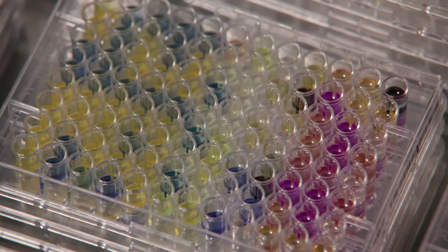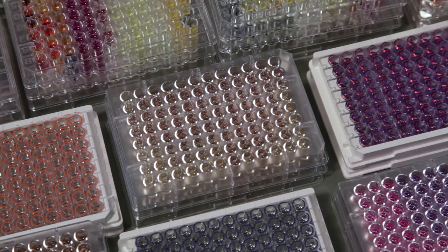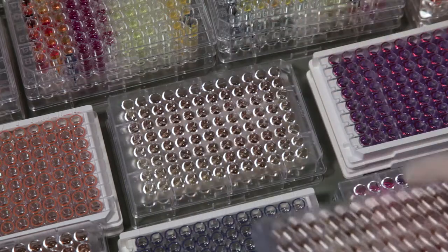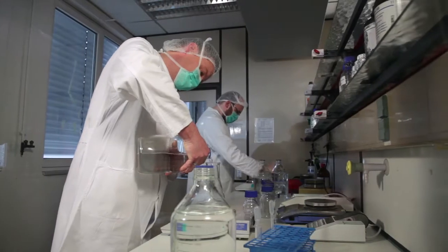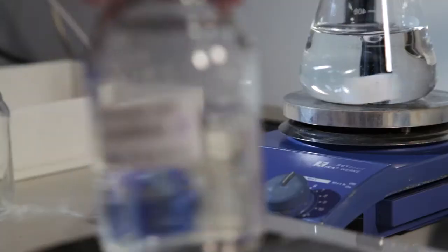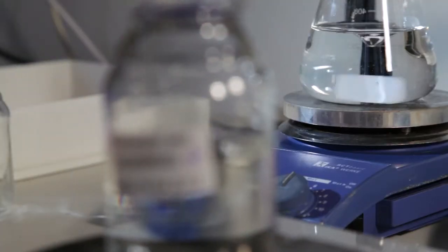Micronaut is the trademark of Merlin's product line for automized identification and susceptibility testing of bacteria and yeasts. Micronaut consists of a wide variety of diagnostics whose production is based on specific recipes.